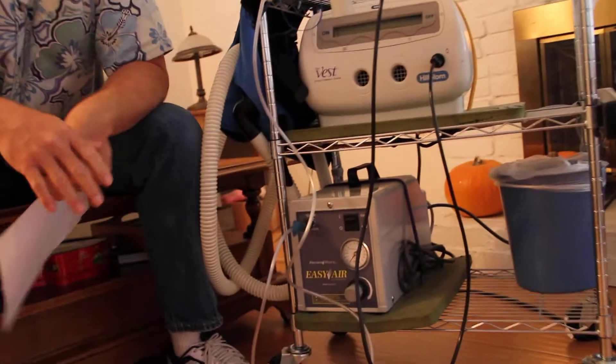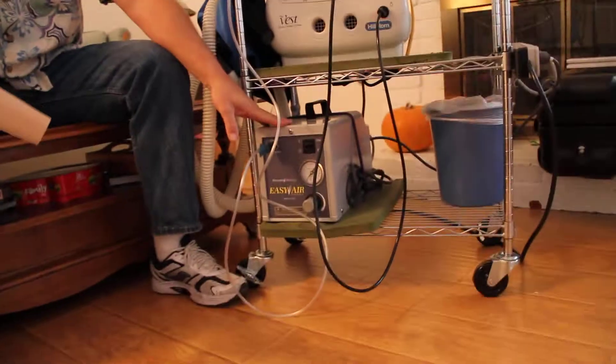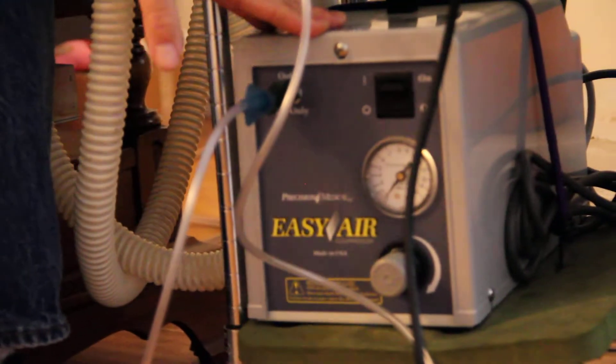Hi, I wanted to talk to you about a question I had regarding cystic fibrosis and our medications. I used to sell power tools, and unfortunately this has kind of led my question. I've been searching for this answer for about a year. I have three children with cystic fibrosis, and when our normal compressors were blown out, we went to find a solution.